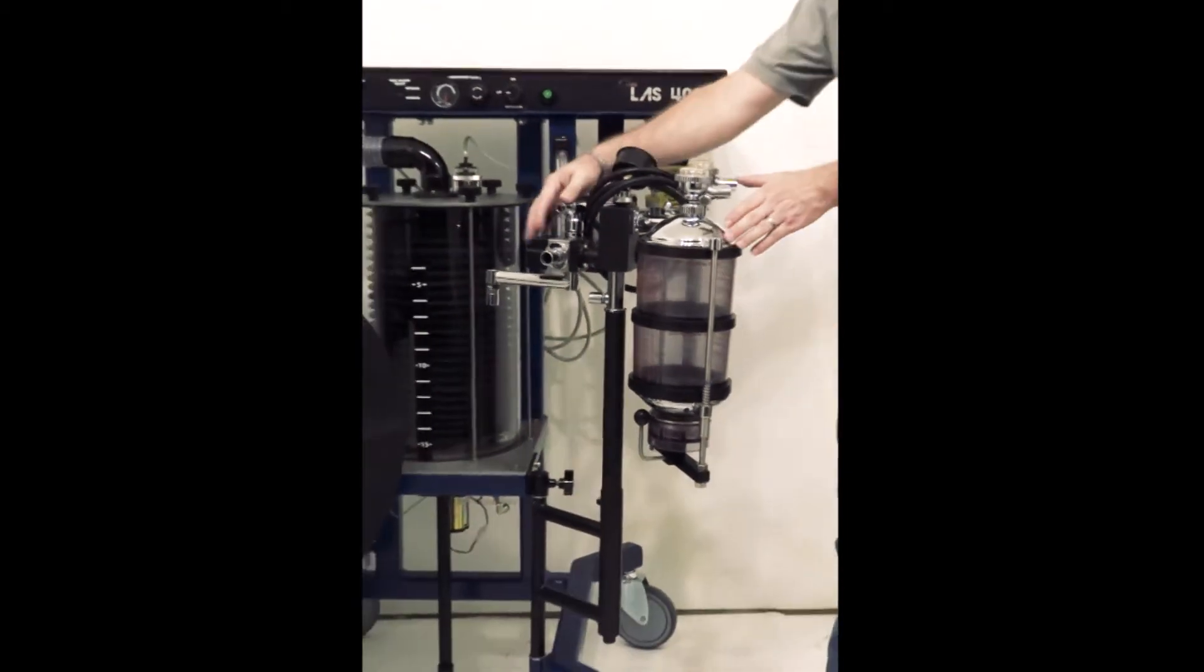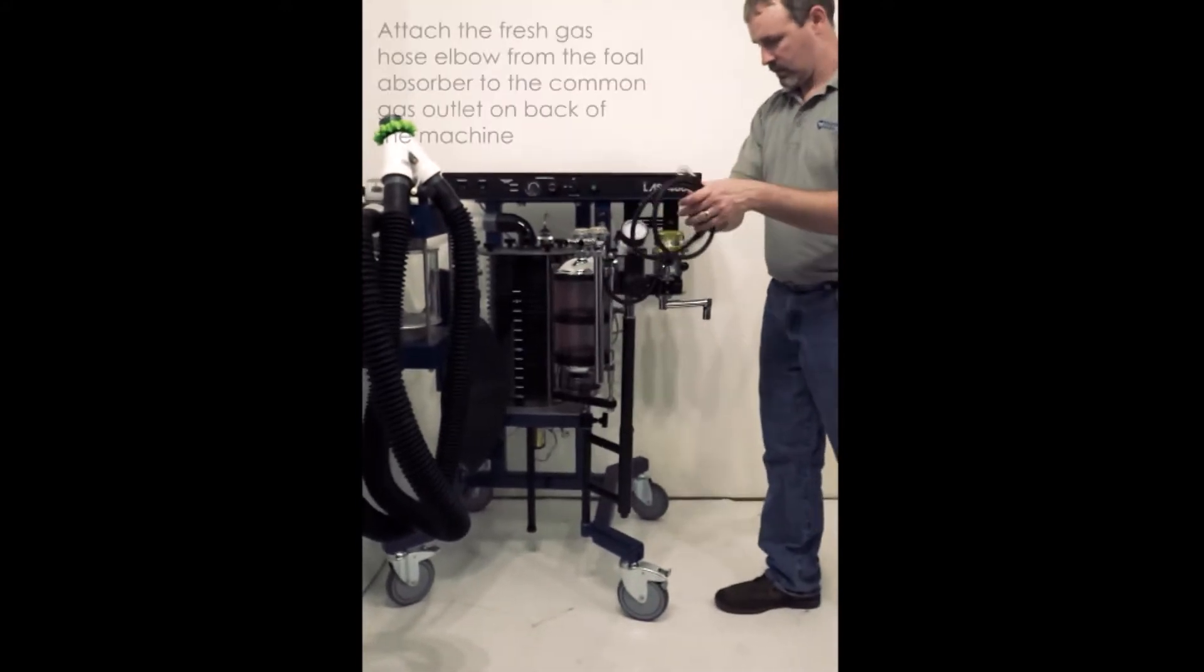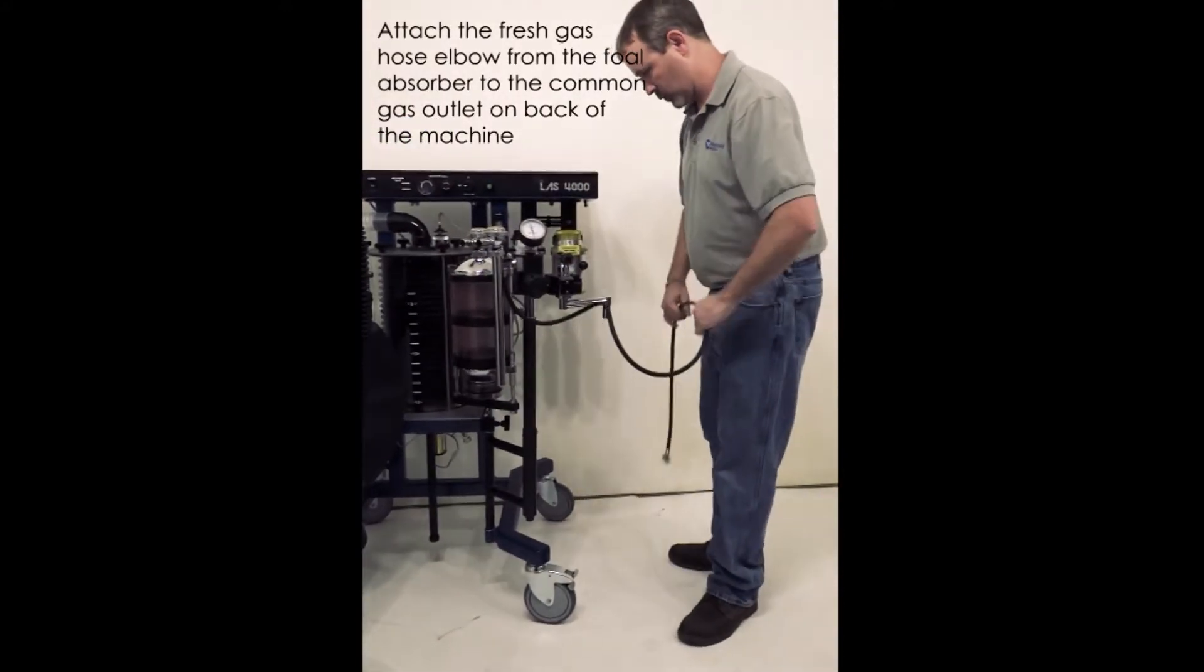After attachment to the machine, ensure you attach this portion to the back of the machine for the common gas outlet.